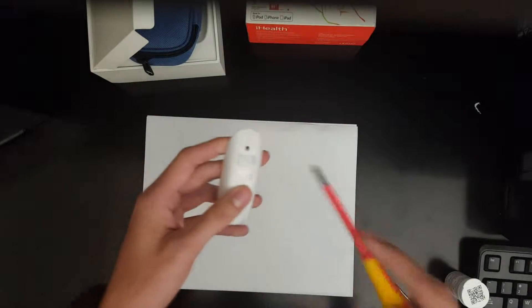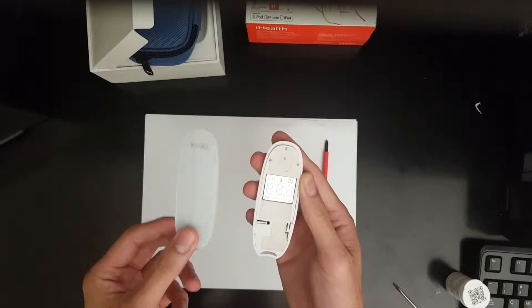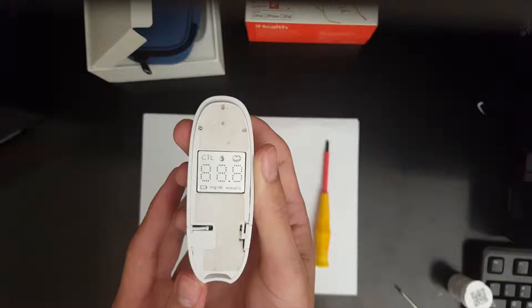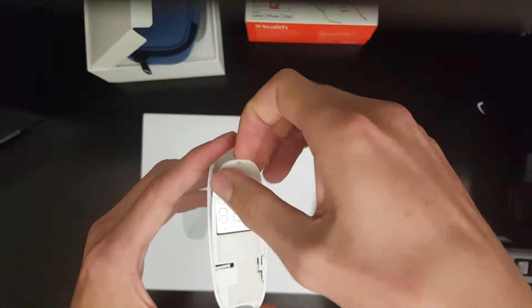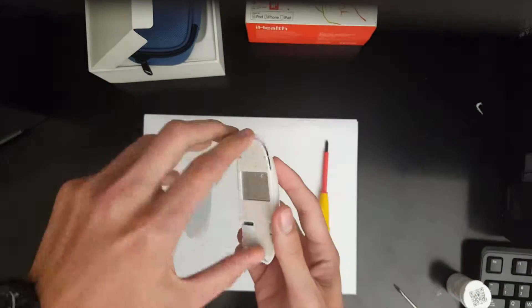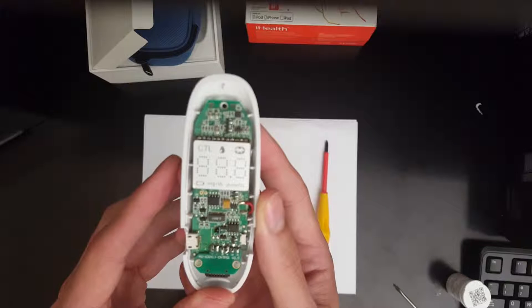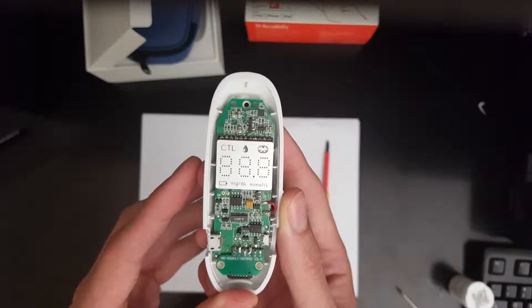We are now going to be taking apart this device. You can see here the main LED display screen, which we will then take off. This circuit board has six main components: an LED screen, a Bluetooth antenna, a thermistor, a 6-pin reader, and a microprocessor.